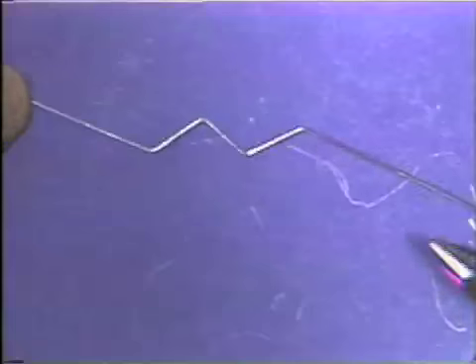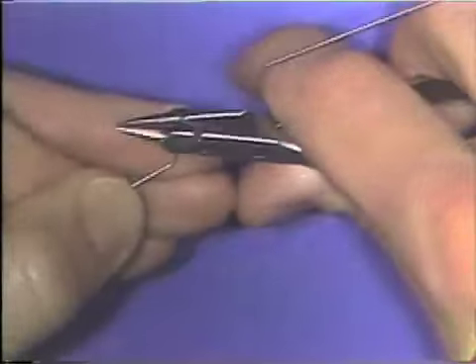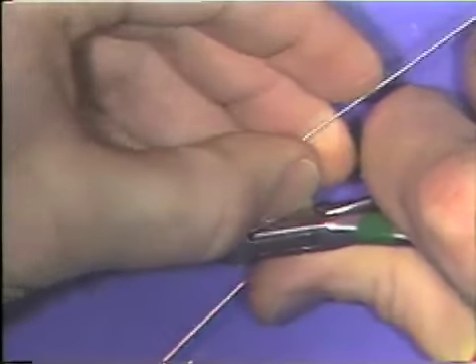You try to flatten the wire again now by placing the beaks of the plier back on the wire and bending it a smaller amount.